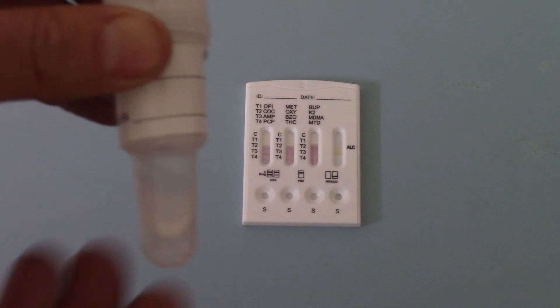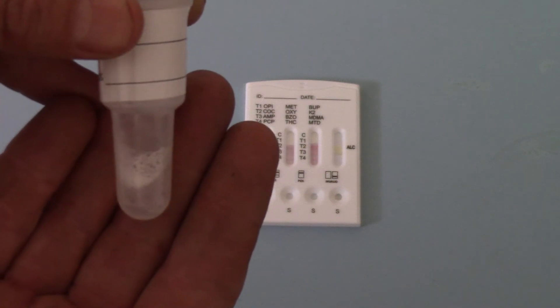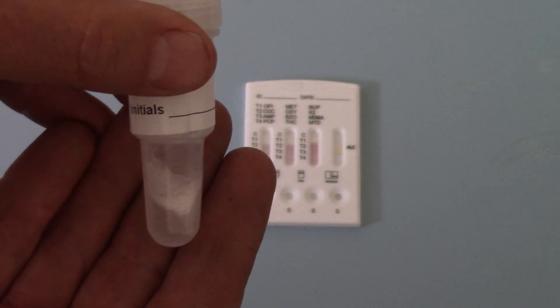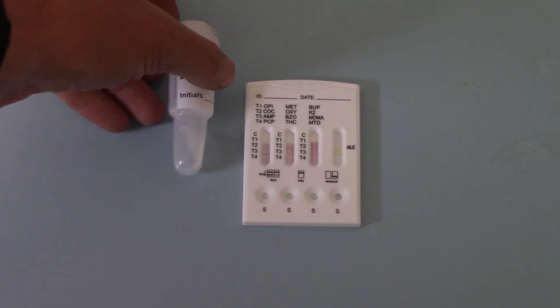But if I show you the bulb here, you'll see I've only had to use probably a third, maybe even a quarter of the sample that that swab has collected to adequately run these tests.